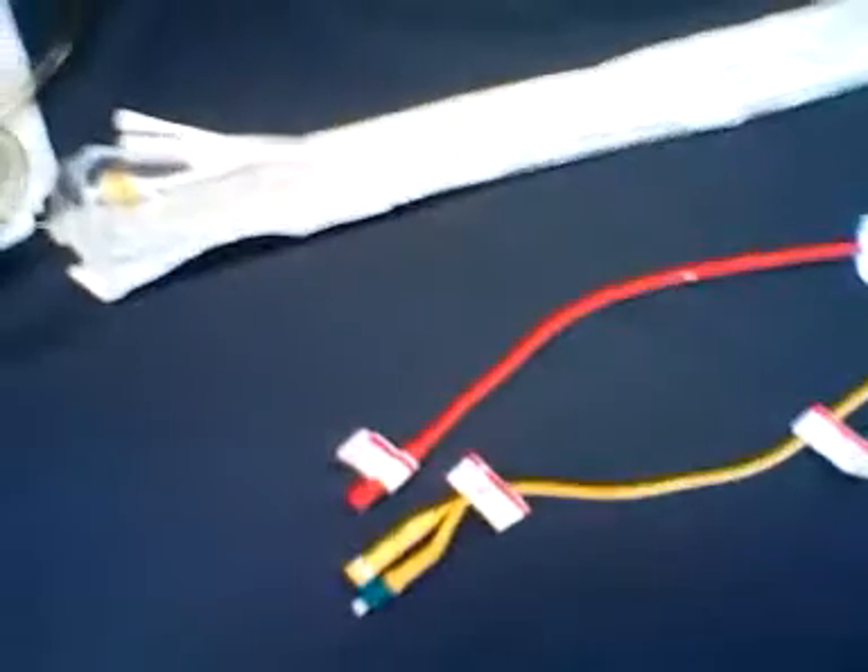This is another padding. What was this called again? Miami J. Miami J. Foley catheter — indwelling. So what about this right here? This is just called Foley? This is a Foley? Foley catheter.